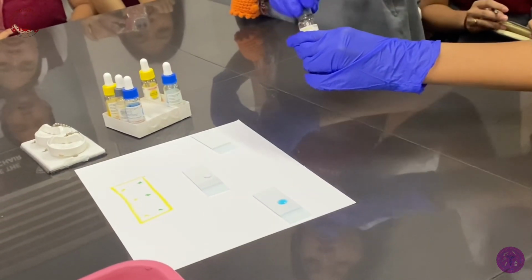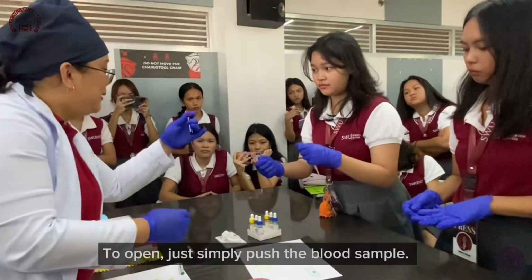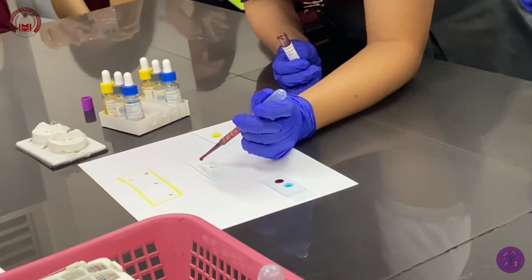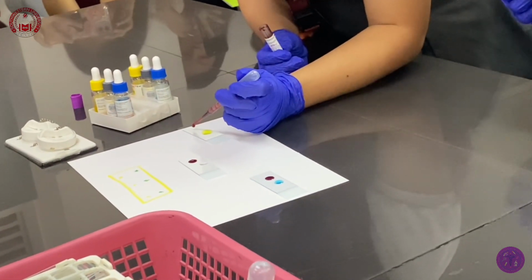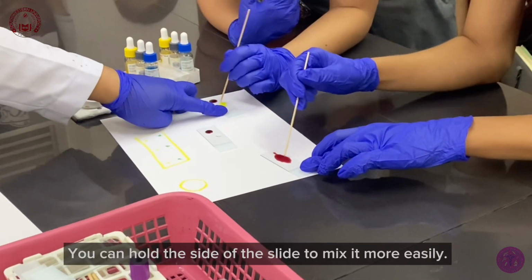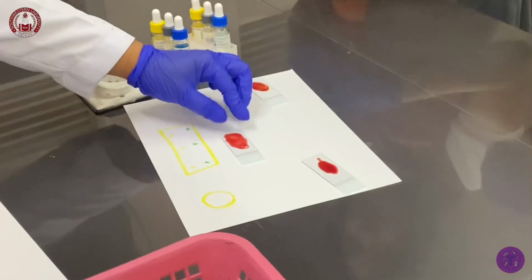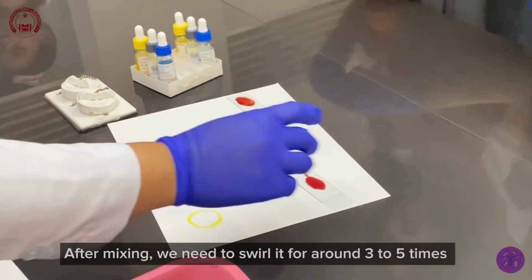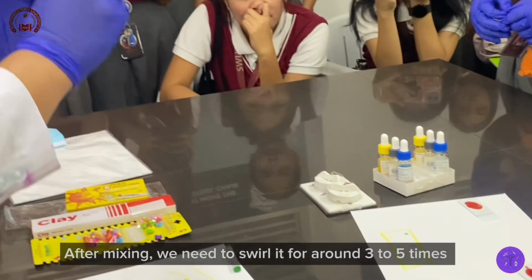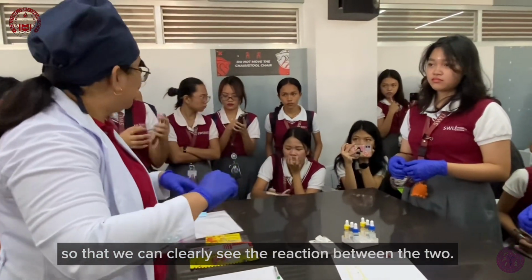Alright, next. So it's time for the kit. To open, just simply push. That's enough. Very good. You can hold the slide at the side and then mix. After mixing, we need to swirl it around 3 to 5 times so that we can clearly see the reaction between the two.